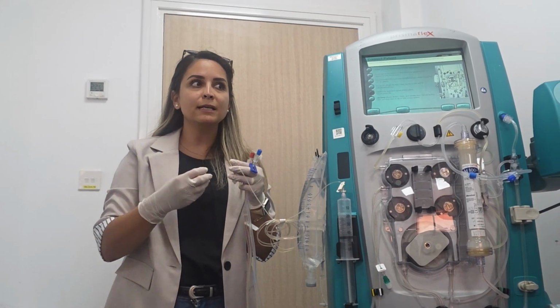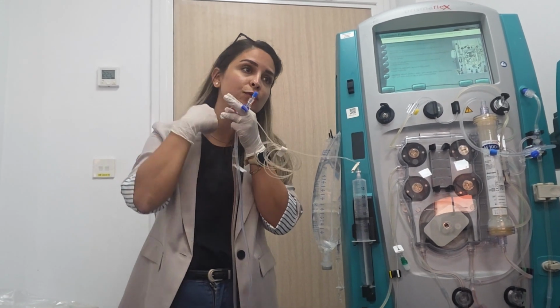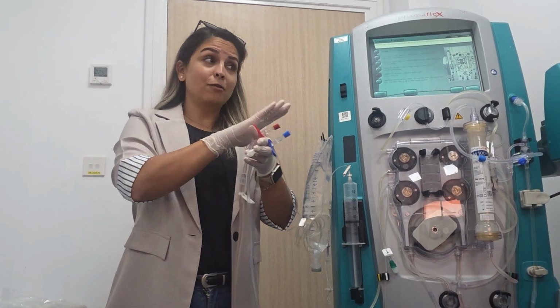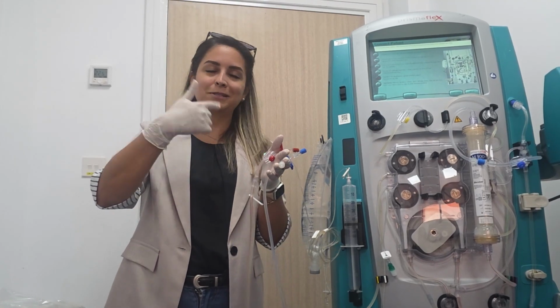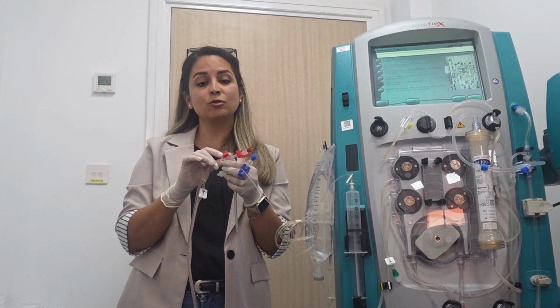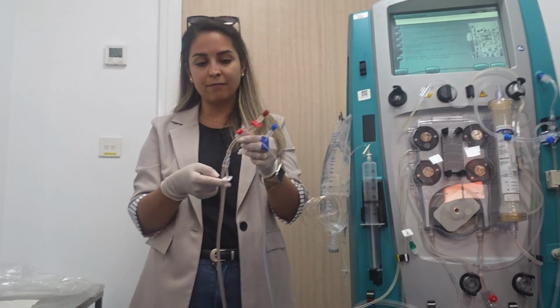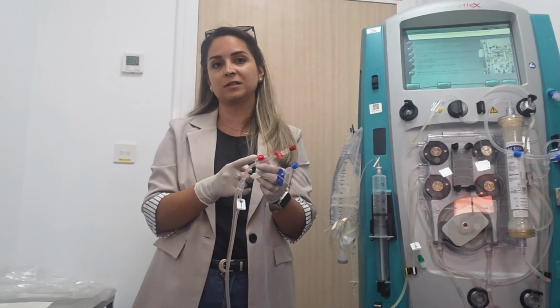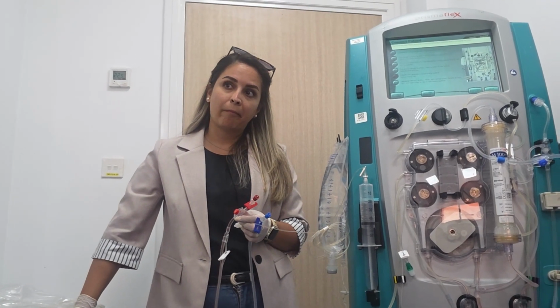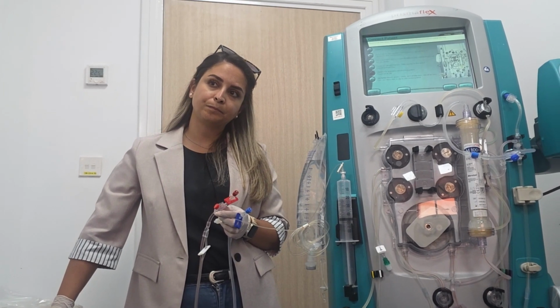So the idea is that we need to take a blood sample from a place where there is no infusion of calcium. If you are out of options, no arterial line, no central line, then you only have this one. Okay. But again, as I told you, still it's not accurate, because we are afraid of having citrate coming to this port from here. But do you have any compatibility list that we can use together with the citrate? Something where there are 100% no issues.